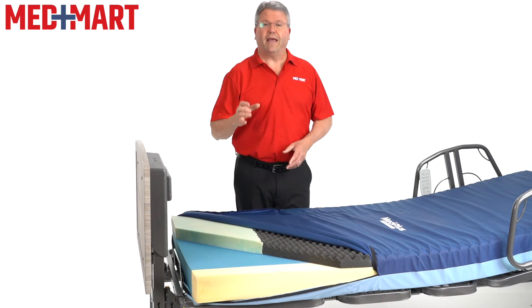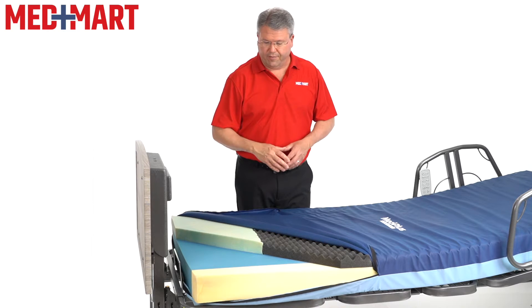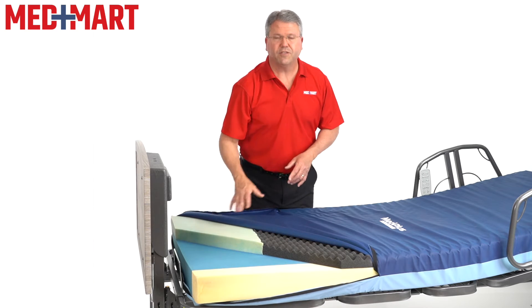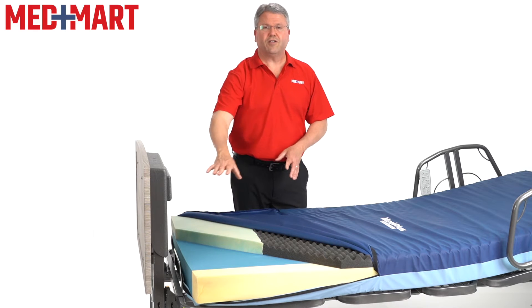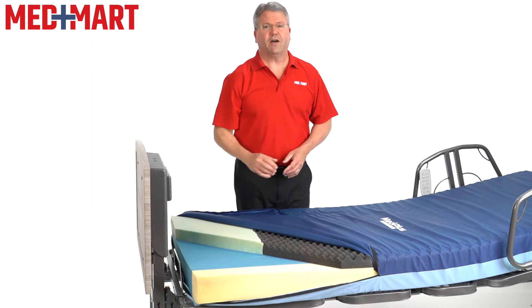In this video, we're going to review some of the features and benefits of the HeelCare RLX and why it might be a good fit for your loved one or the person you're taking care of. We have a special cutaway model so we can see the internal parts of what makes up this mattress. Yours won't look like this, and it will have a thin layer called a fire sock that goes over the top of it.